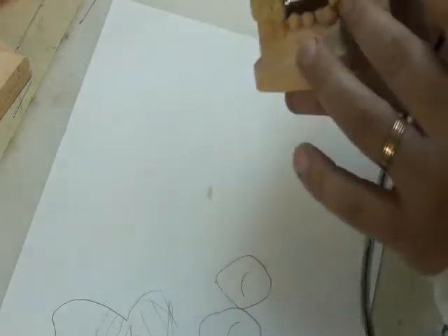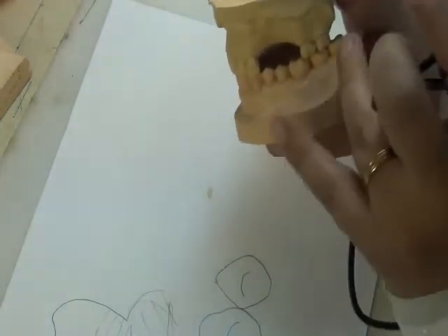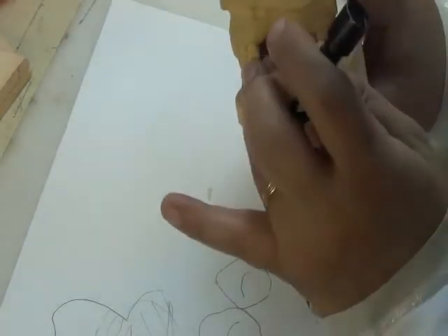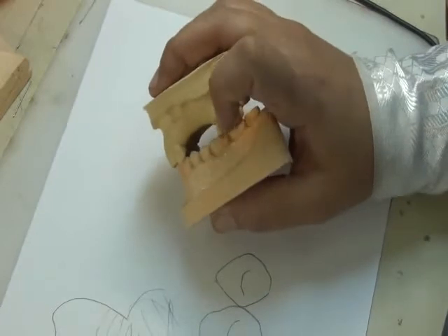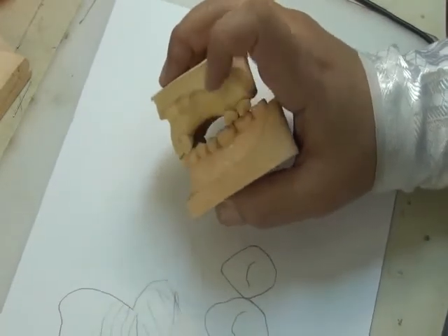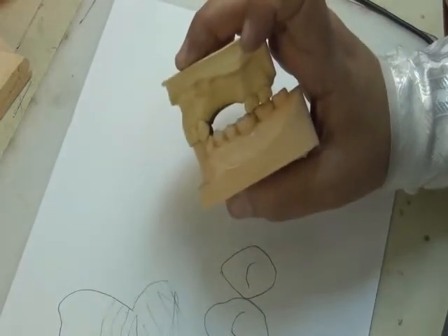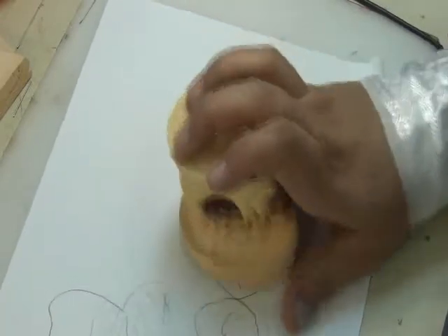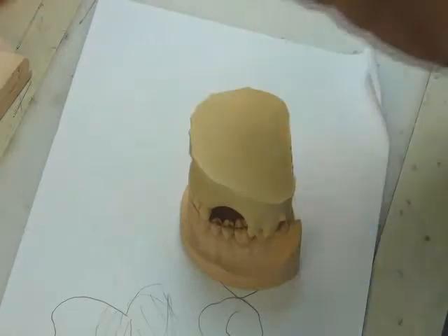And this is a bounded saddle. So how do I know that this is a bounded saddle in terms of occlusion? I have a contact here and a contact here between the natural teeth. So if this was the natural case in the patient's mouth, I have a contact between this tooth and this tooth and this tooth and this tooth. When I finish setting, the contact should still be there. It should not go with a space. If I have a space, that means my setting of the teeth was high and it altered the occlusion.